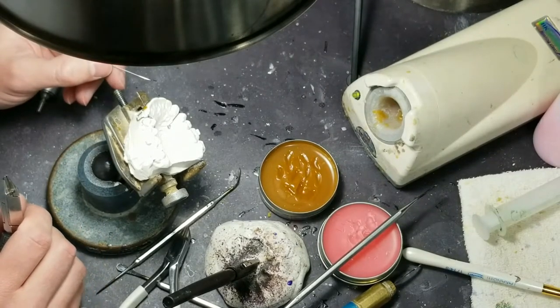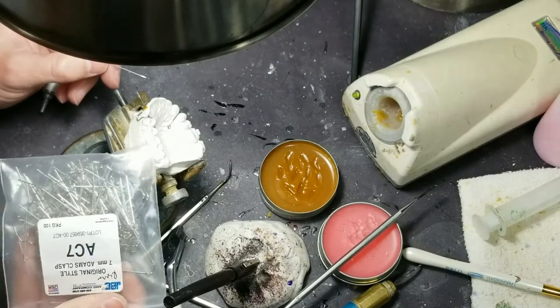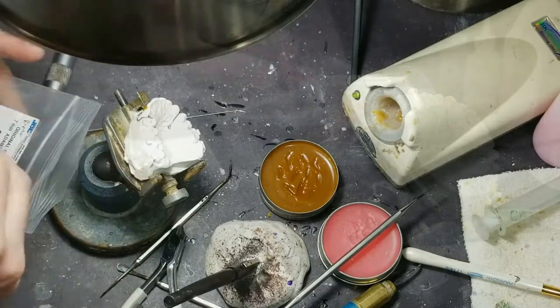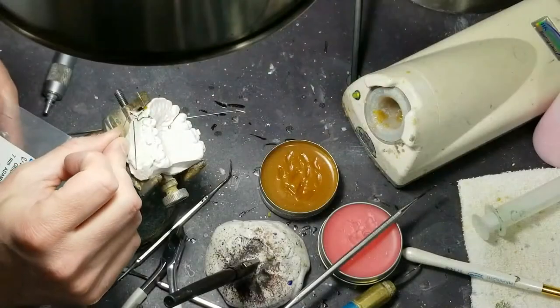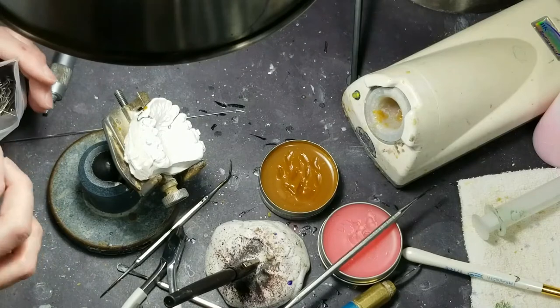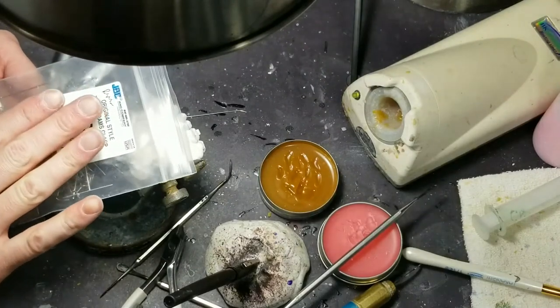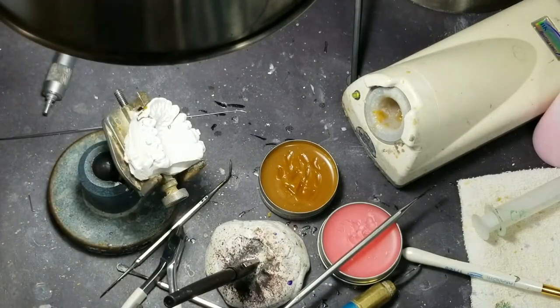I really hate making Adam's clasps. I don't blame you. This is what I use — pre-formed Adam's clasps. They look like this. But I do have a video on making them — it's actually one of my most popular, because I think a lot of people don't like making Adam's clasp. It's how to make an Adam's clasp from a straight piece of wire. But I tend to use these pre-formed ones — they go a little bit quicker. You do need to learn how to make one from straight wire because you'll be able to bend these faster. They come in all different sizes.